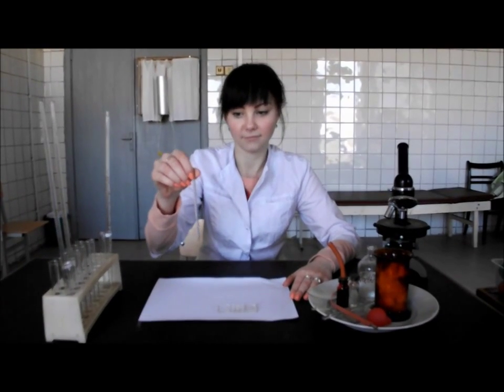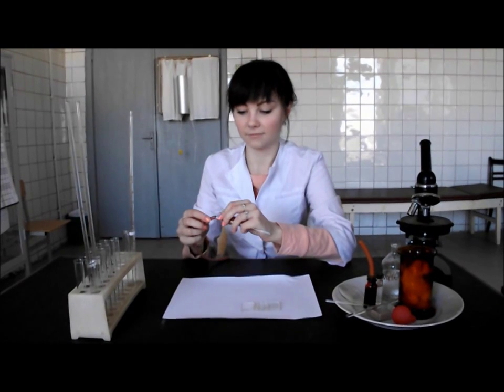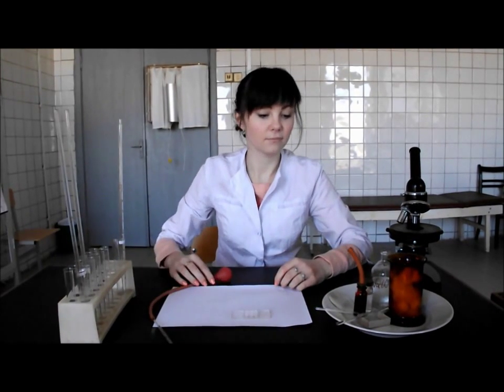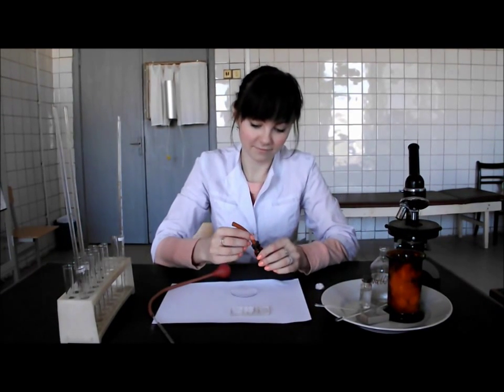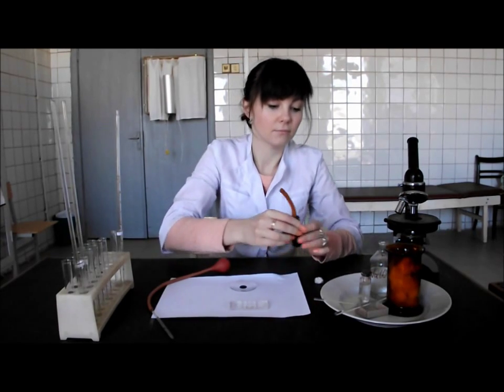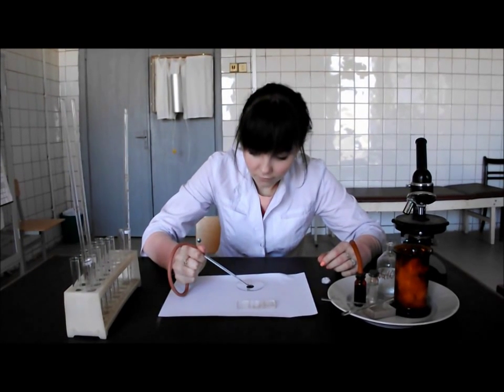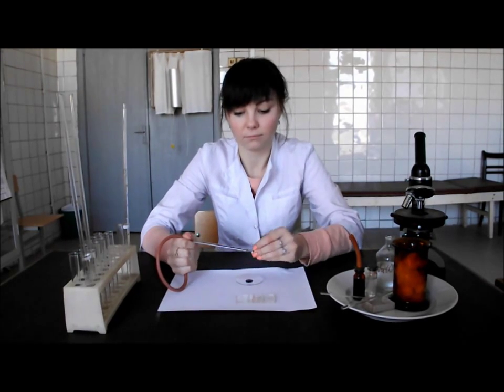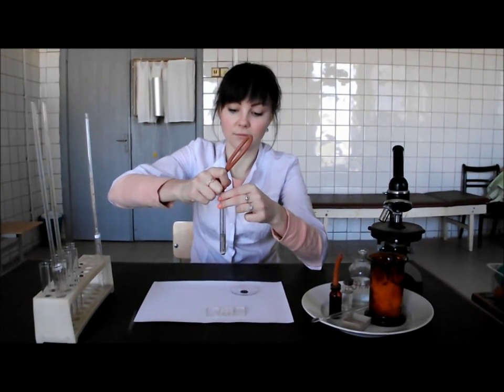Take the capillary marked 0.02 ml from the plate. Connect it with the rubber tube and fix the spray bulb with the tube completely. Take 0.02 ml of donor blood into the capillary, drawing the blood to the top. Add 0.02 ml of donor blood to the bottom of the test tube with sodium chloride, so that the upper layer of solution remains unpainted.